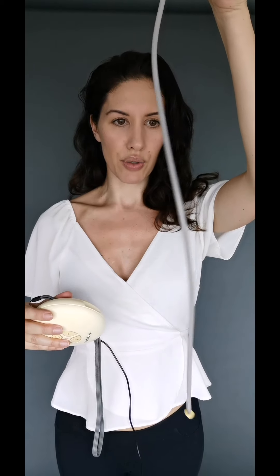Back to the clip — I've never actually used it, but it does look like it'd be quite useful if you want to pump on the go. For that you would need a breast pumping bra, which I don't have, but if you do have one of those this is a great useful thing. You've also got this lanyard which you can put around your neck. Next up on the parts is the actual tube, and then the vessel to hold your milk — it comes with one of these bottles and you can buy more.